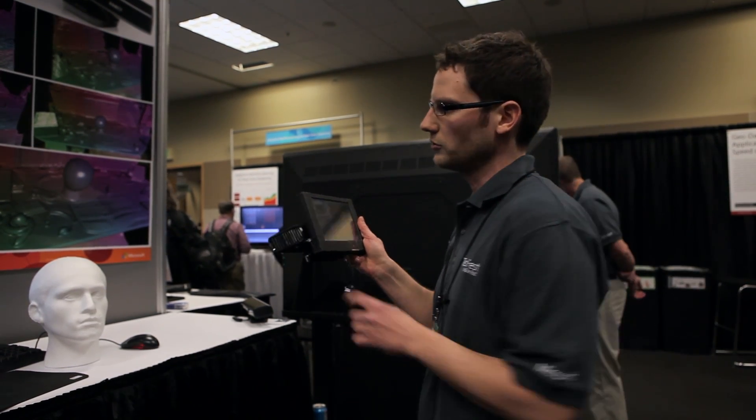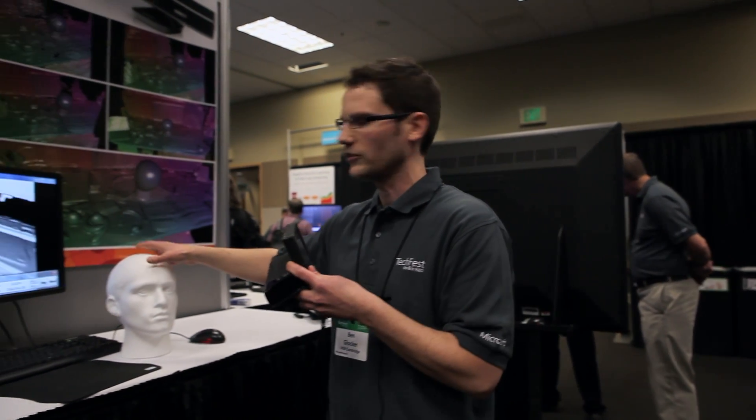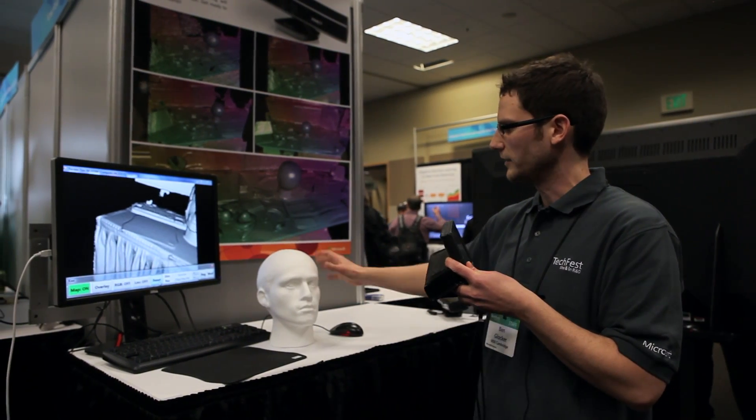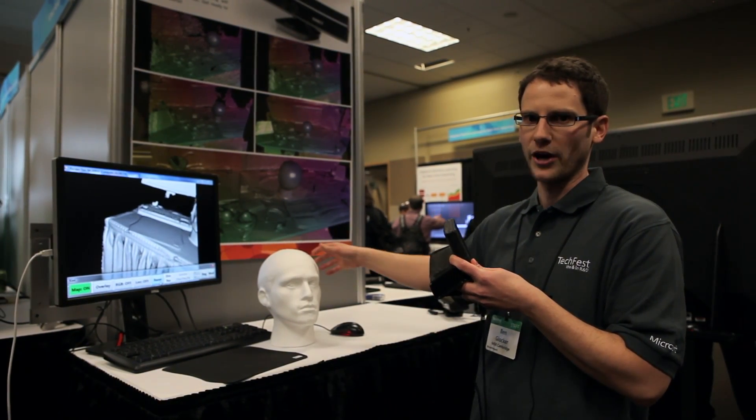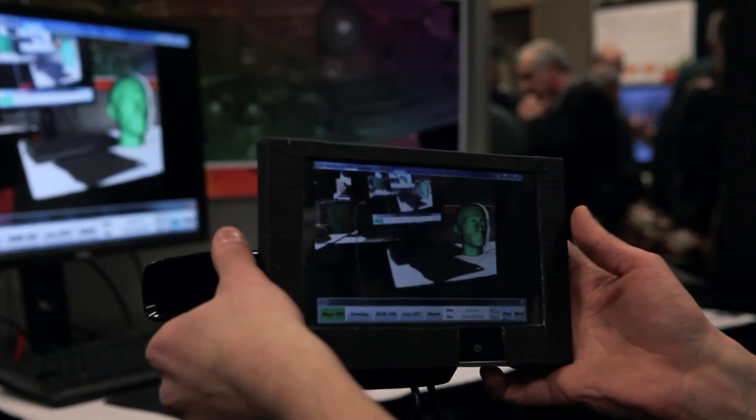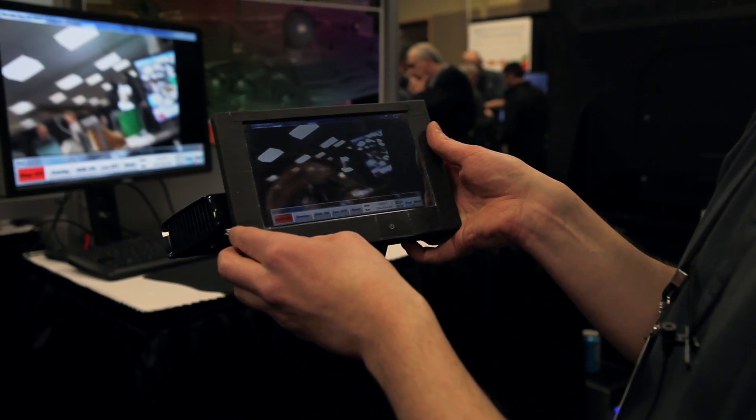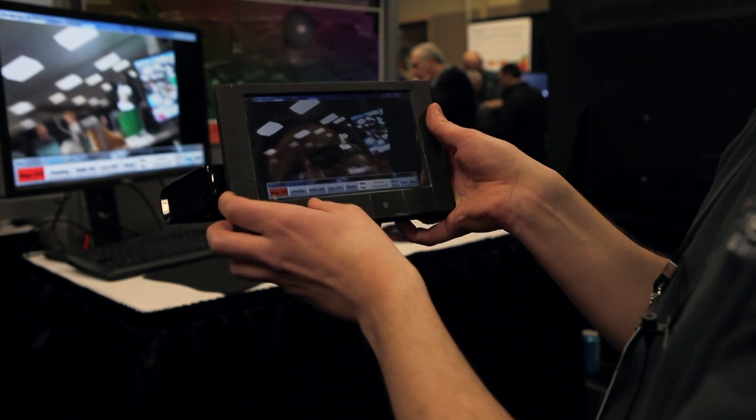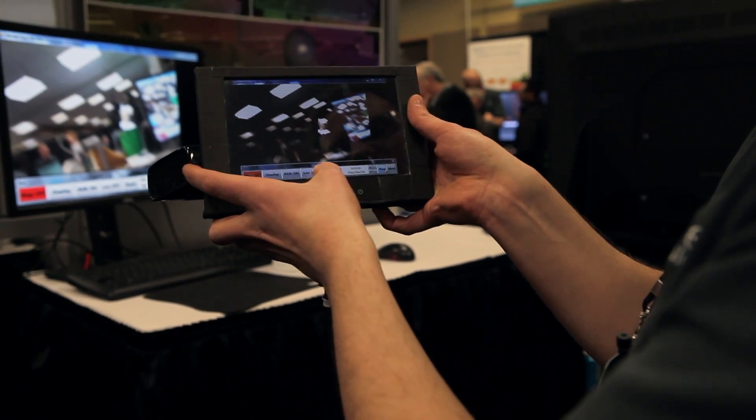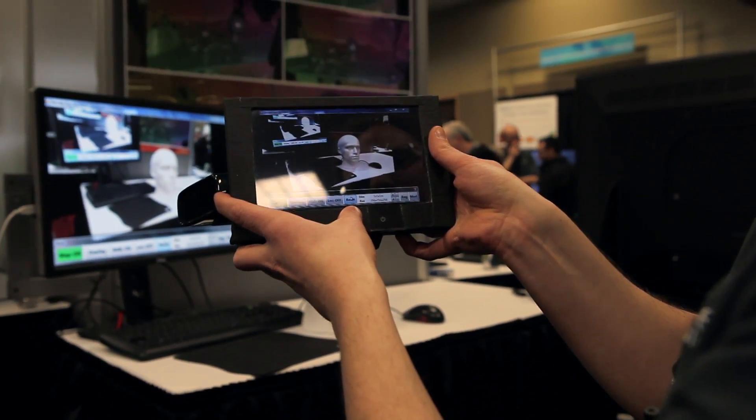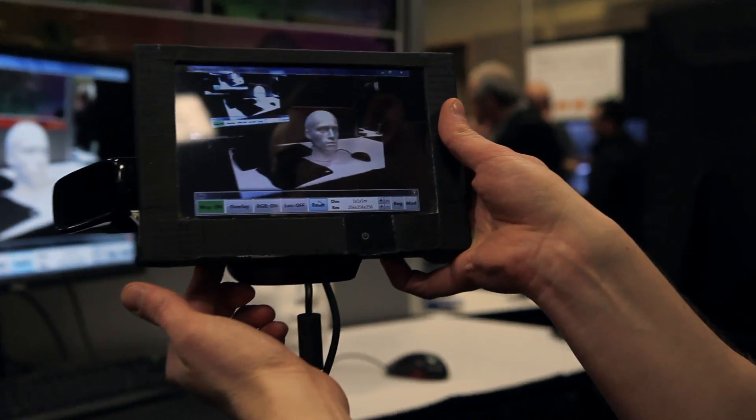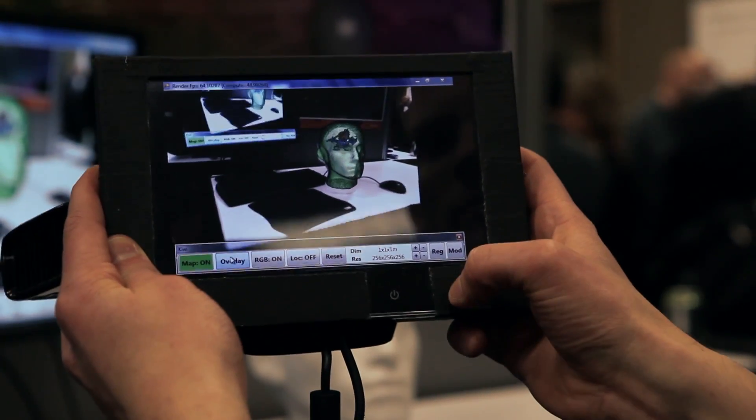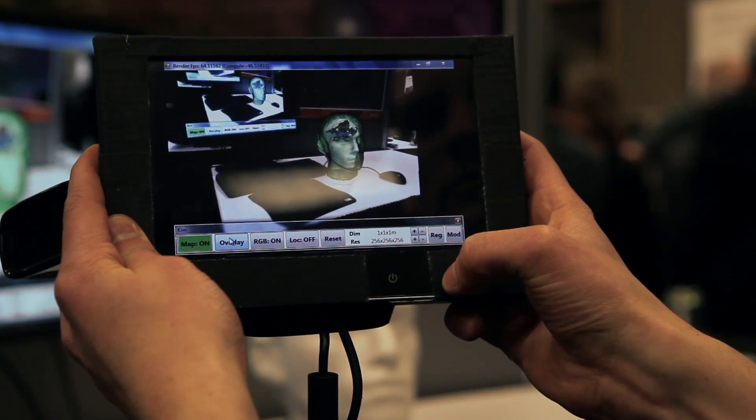So what I show you here is, imagine this is a patient's head in the operating room and I need to do some surgery on the brain. So what I have here is a regular Kinect device, a sensor which you can buy in the stores. And we just attach a USB powered touch screen device, which enables us to see from this position, basically the world, as you would see it from the sensor.